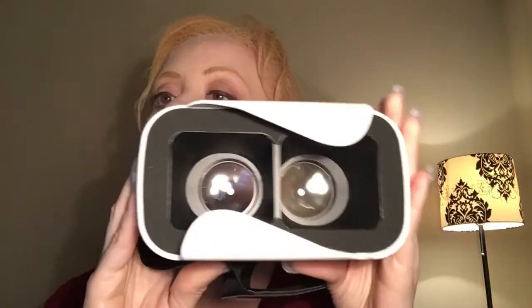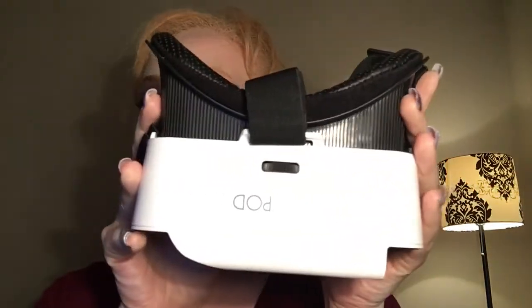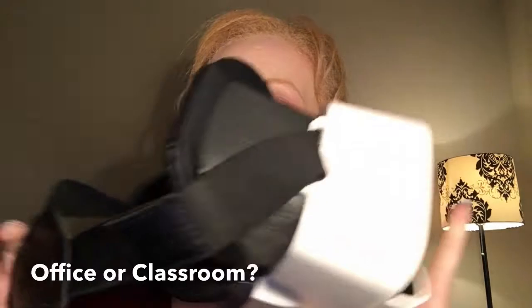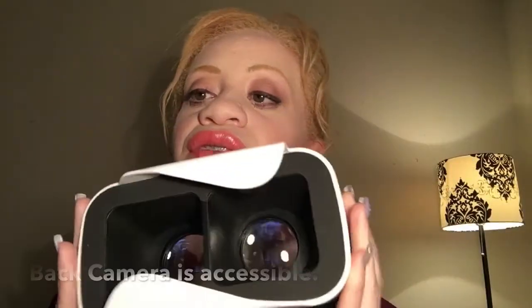I'm not sure what the standard size is for most VR headsets — like I said, I don't use these for anything other than what I need them for. This is what it looks like in the front — pretty cool. It has a modern look to it. A lot of the ones I saw look boxy and ugly, and I would like something that looks a little stylish. I'm probably not going to wear this anywhere outside of my home, but maybe if you're in an office and need magnification at your desk, you'd choose something cute like this.